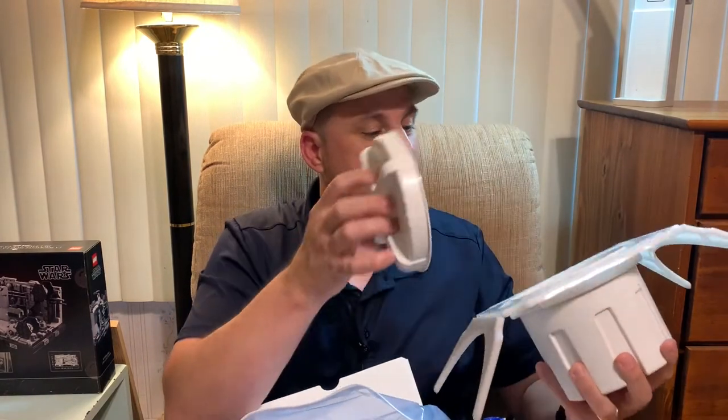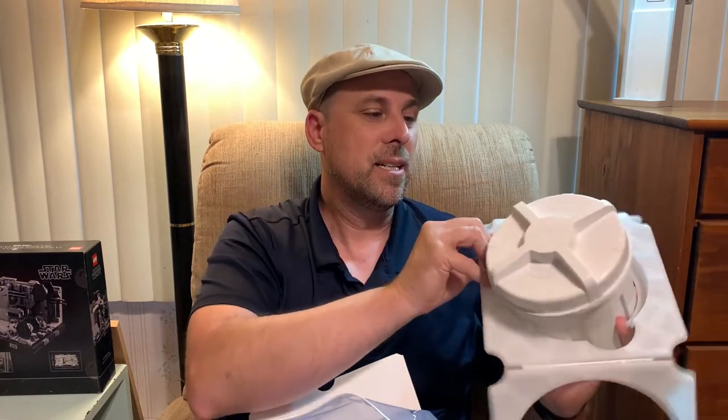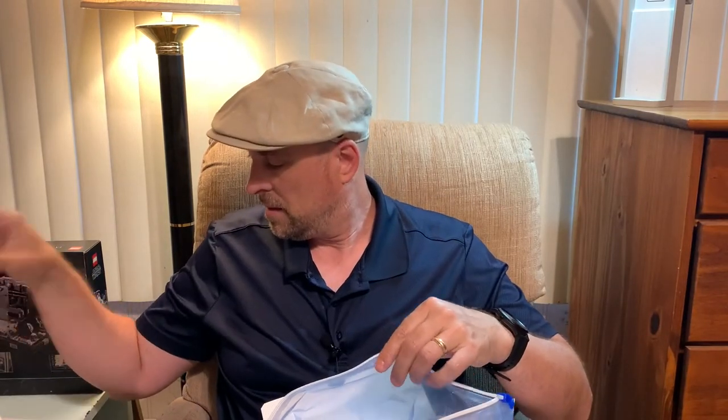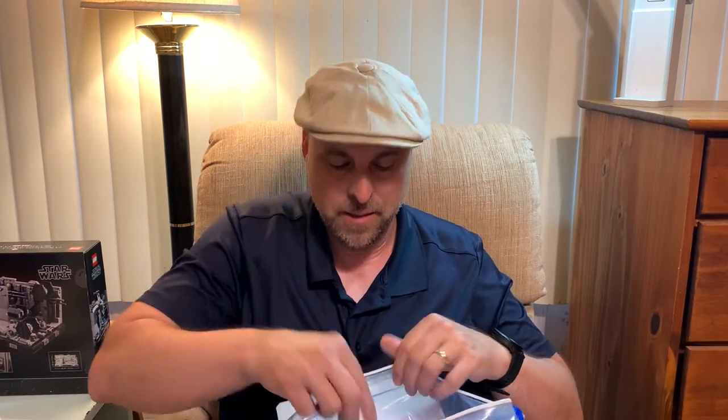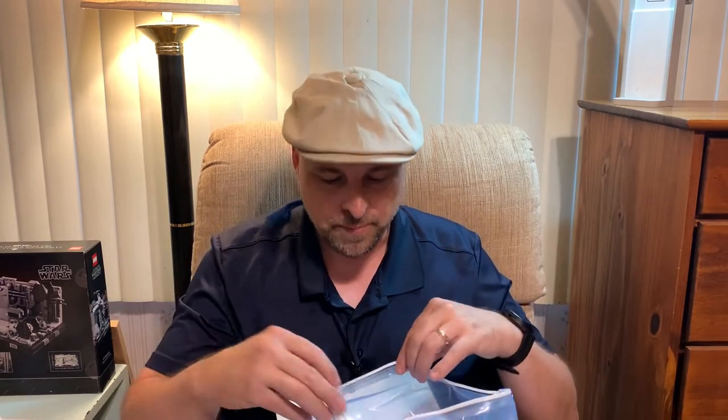Now, I will say this — I am looking at this container. I'm going to have to read through the instructions because I'm not sure everything's going to fit. There's a liquid preservative here, it tells you how to store it and things like that. And there is this tube that's got a liquid preservative in it, which you use to collect a micro sample of your larger sample. And that's really it. There's the packing materials in there that also don't come out.